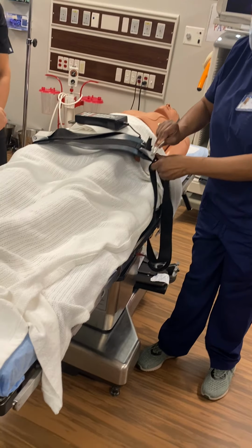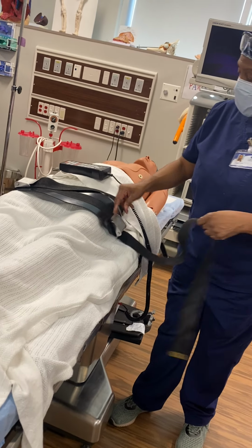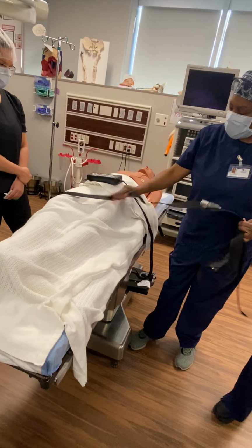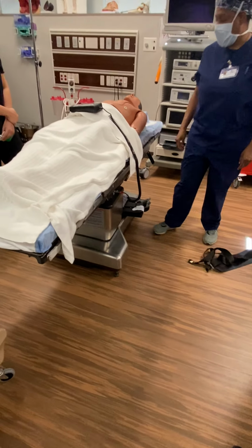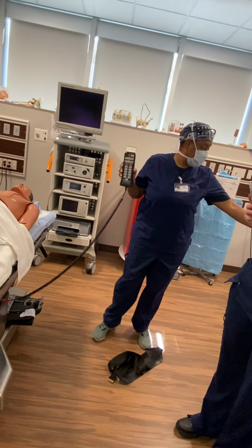Okay, you look down, so this is like a seat belt. Look down here, lift it up, and y'all have to come pull it around and kind of look down here, you see this? Okay, we're gonna turn it. Just taking it out, okay? So we're gonna show you the bed. Okay, I loosened it, now there's different beds with different, like, look at that one.